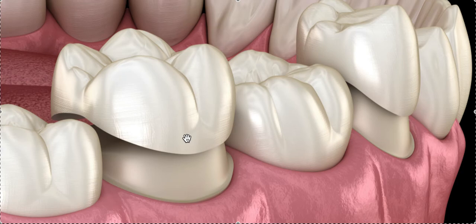If it is porcelain, it really depends on what type of porcelain it is, and most likely you're not going to know until you go in and try to bond to it. From my experience: the nicer, shinier, and prettier the crown, the less it bonds. So if it's an older, junky porcelain crown, it usually bonds pretty well. If it's a really shiny, beautiful, glazed new crown — zirconia, something like that — nope, it doesn't bond well.